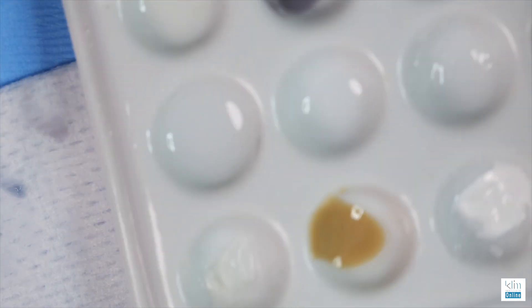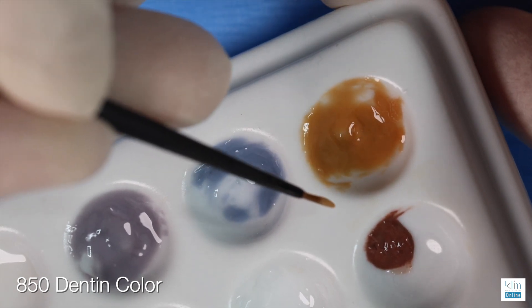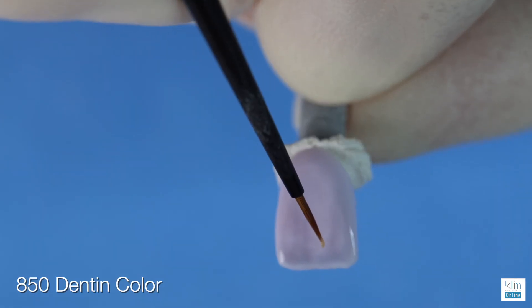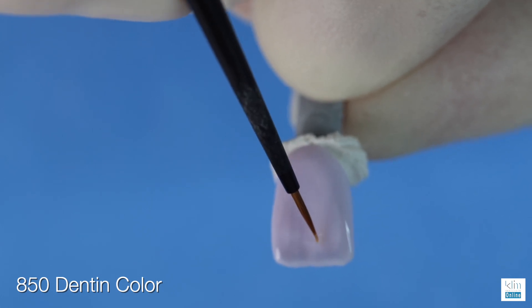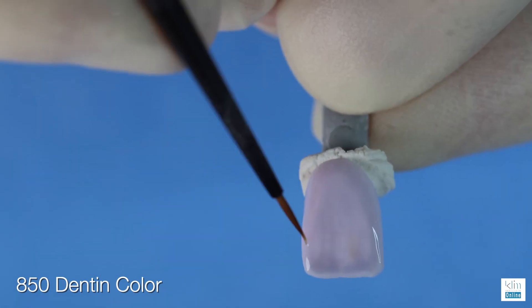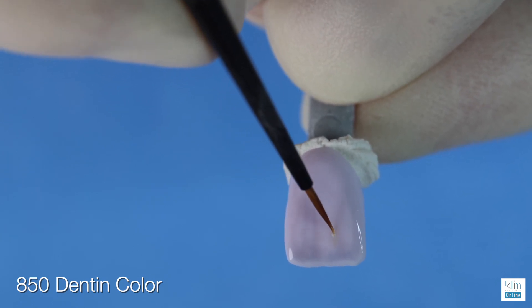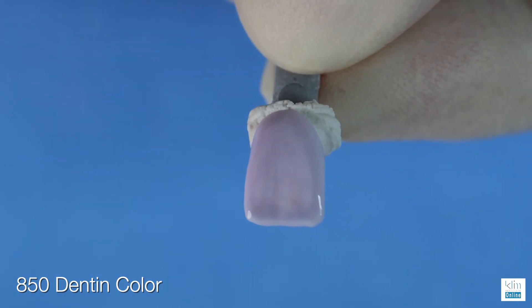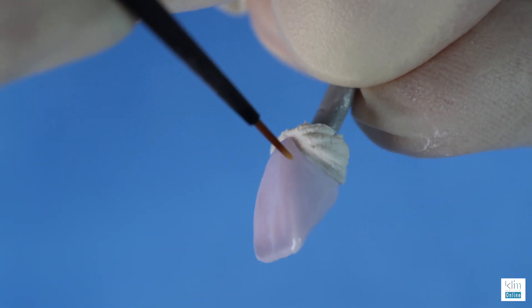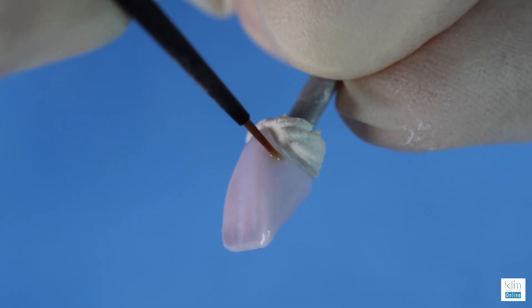Be very careful with the dentinal shade — on either side of the primary depression, nearer to the lower value striation, add a little subtle color. You almost don't see it, but it will enhance the mamelon effect. The inner proximal framing is a technique that will make a tooth look more natural when we're going for the natural look.